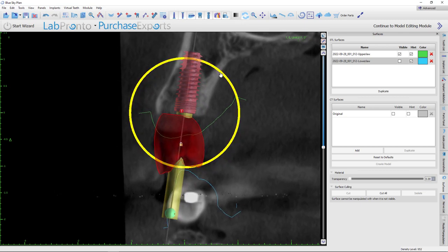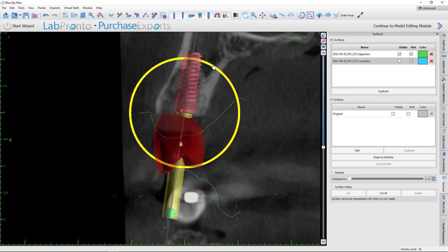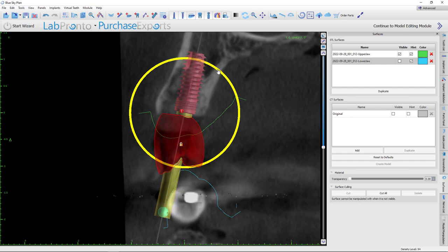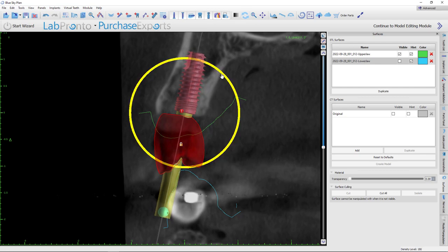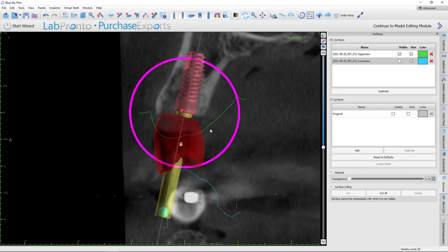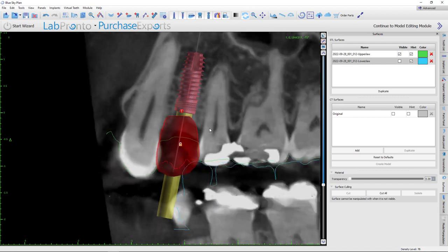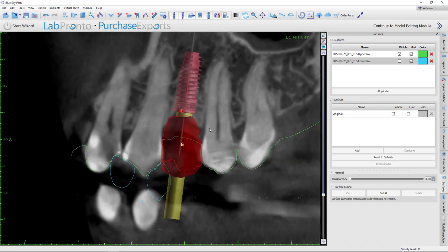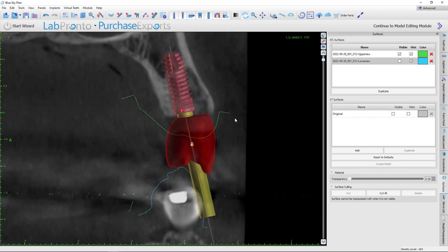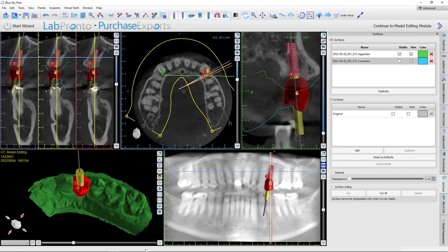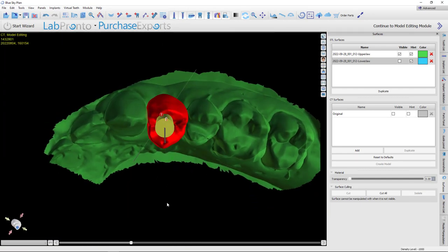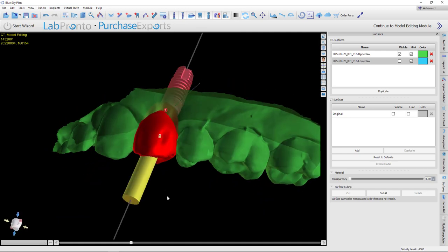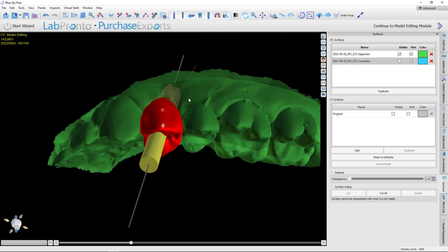And it looks like now I need to pull it over just a hair. OK. So we've got great buccal bone over here. Now I could get this apex where it's a little bit more tucked in the bone. And if I do that, that's probably going to need a custom abutment, I would guess. I think we can split the difference. I'm mainly concerned about buccal bone more crestally. If it's at the apex, I'm not that worried about it. But it looks like we've got at the crest of bone, we've got two millimeters of bone on all sides of this implant, which is pretty ideal. OK. So let's look at our screw access hole. That looks like that should work out really well. OK. So with that done, I'm going to hide the tooth by hitting this button.